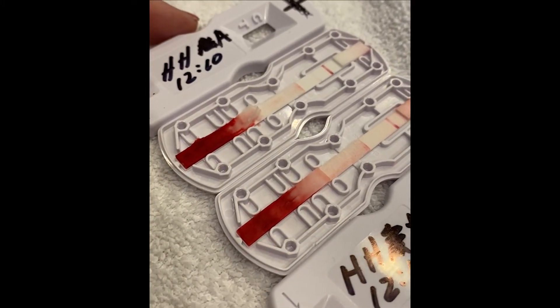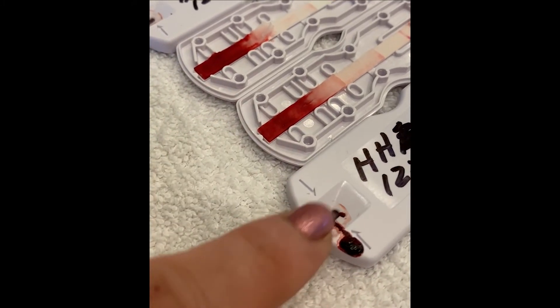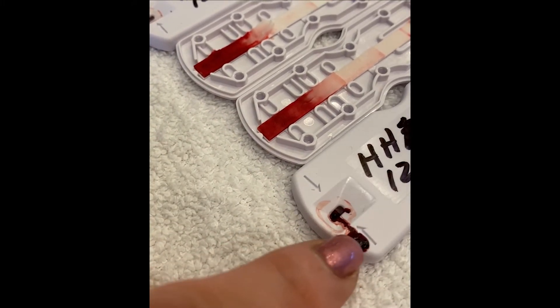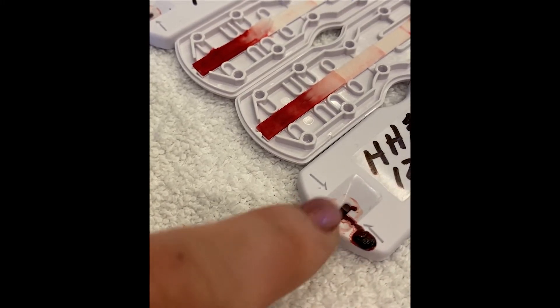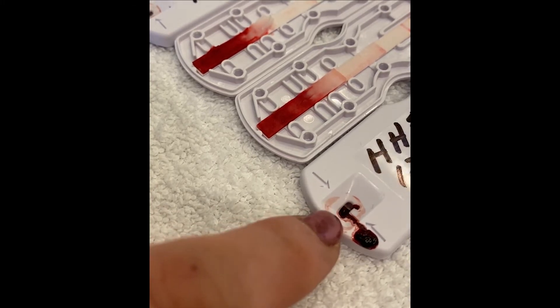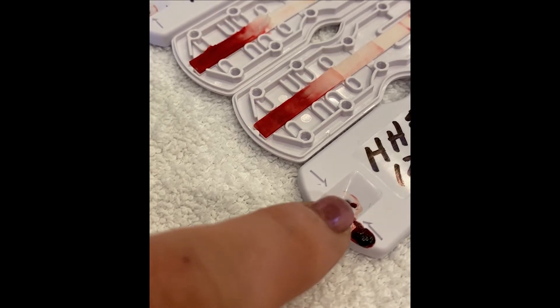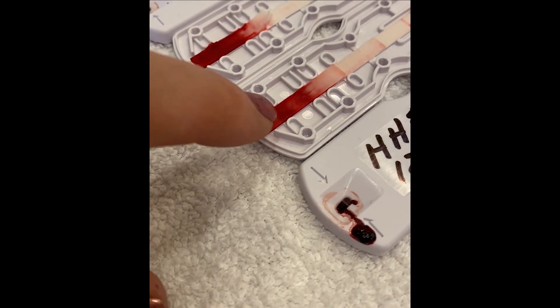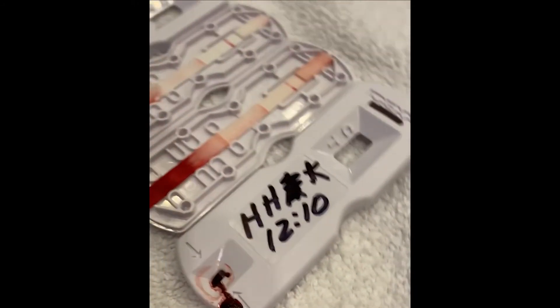This is what it looks like when you tear them apart. This is why it's important to use non-coagulated blood — this one had a little spot of a clot in it, so we actually pulled it out of the window so that the liquid carrier — six drops of wash solution — could actually help move the sample down the strip.